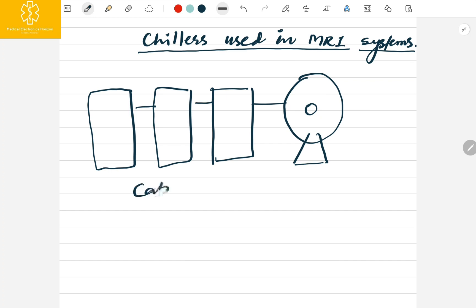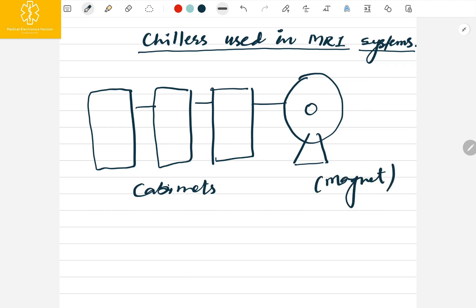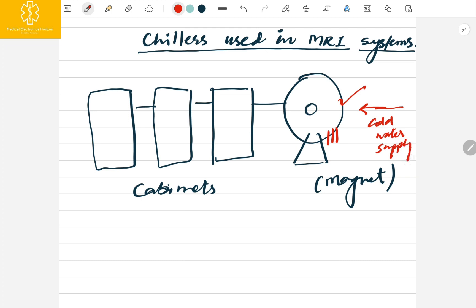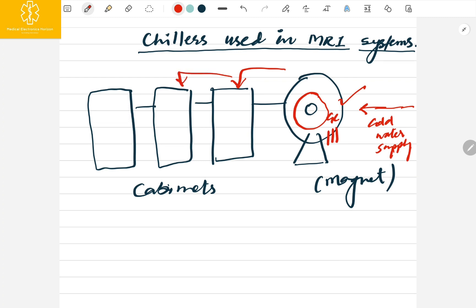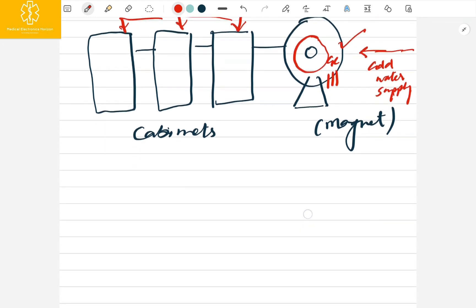These are the cabinets of MRI machines, and this is the magnet. Normally this magnet has a gradient coil and some other electronic parts involved. A cold water supply is needed here to keep the gradient coil chilled, and some cold water supply is also required for the electronic cabinets. Overall, to run the MRI system we need a chilled water supply.